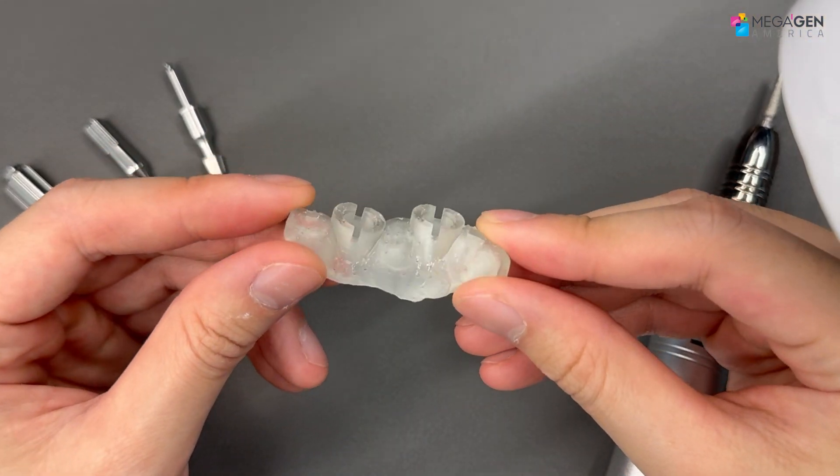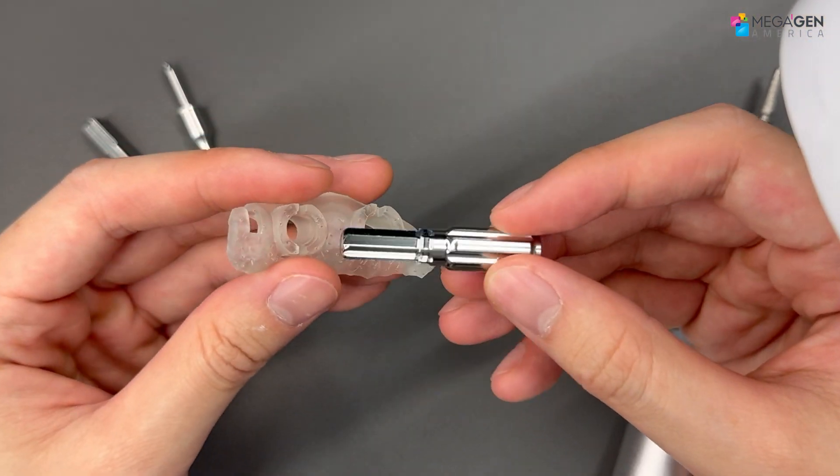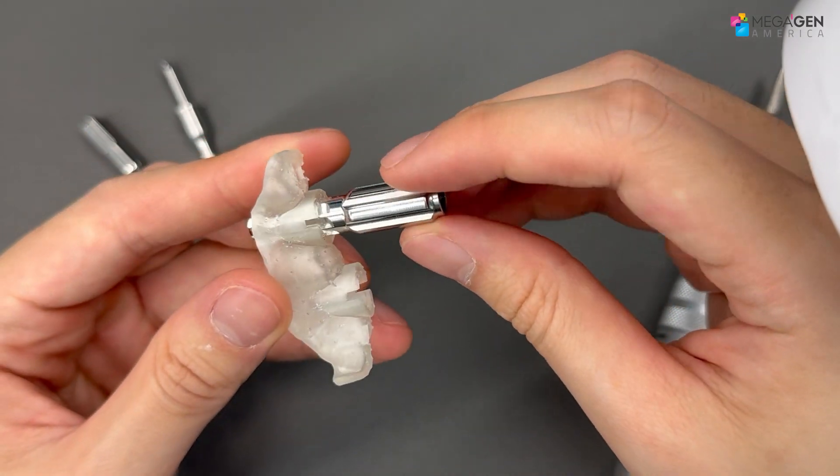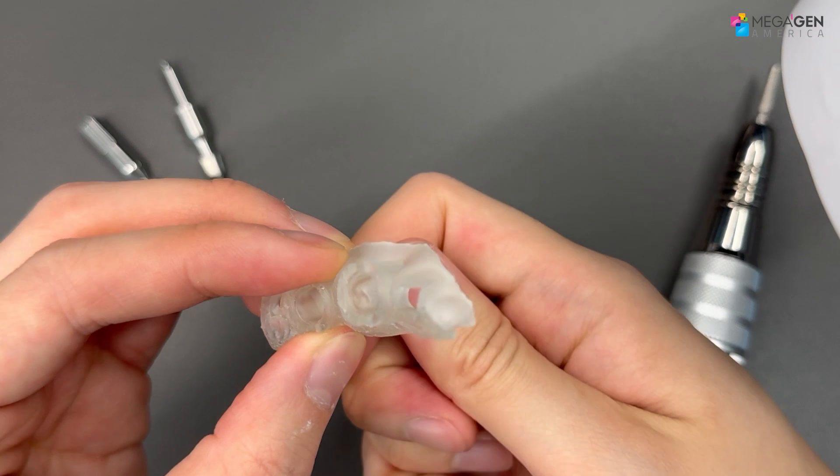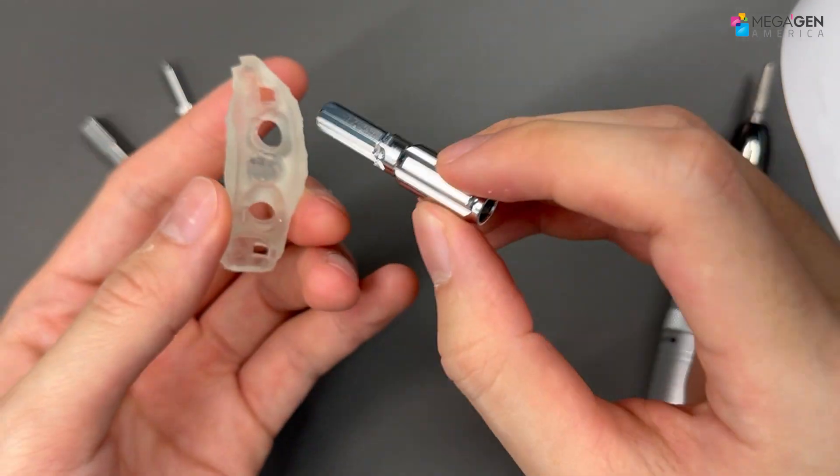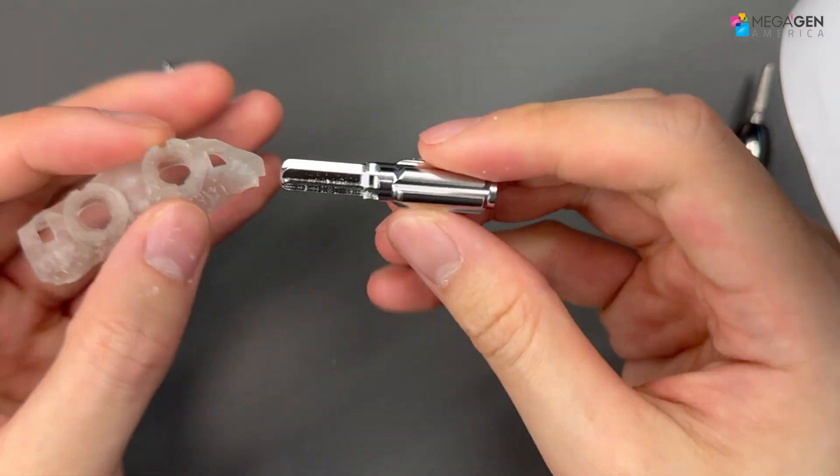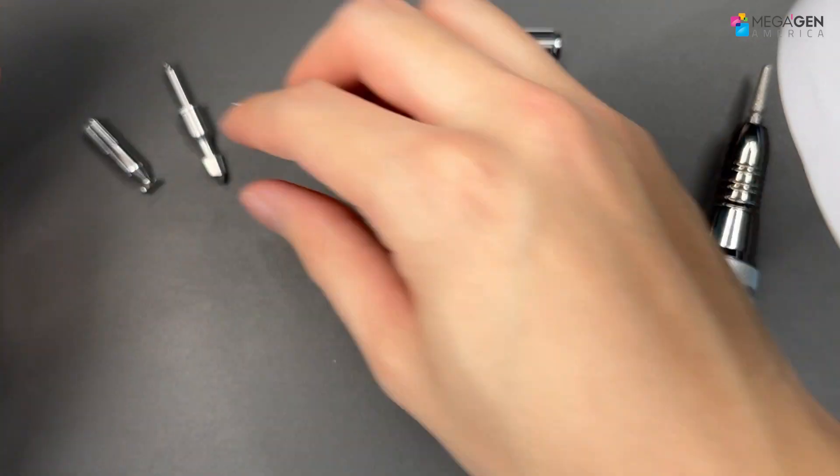Use your guide trimmers to clean the guide hole and the stopper, and use your R2 gate drill and test to see if the drills work properly. Rotate it a few times, but don't overdo it. If you do not do this step, then there's a possibility of the drill getting stuck during surgery.